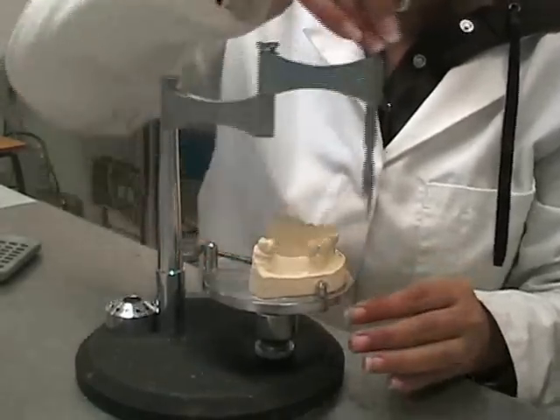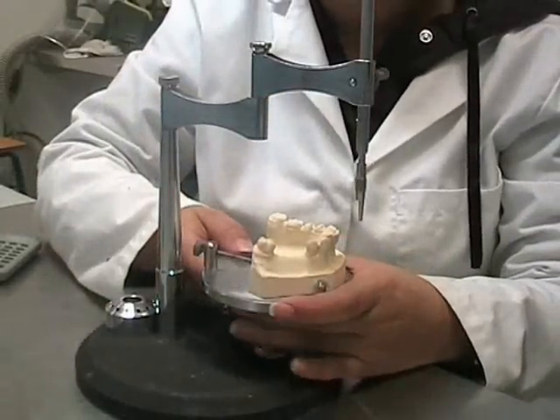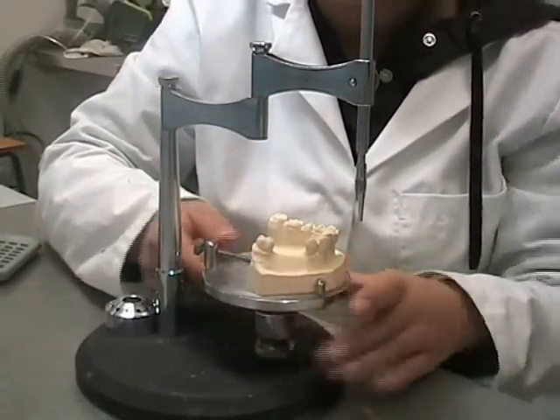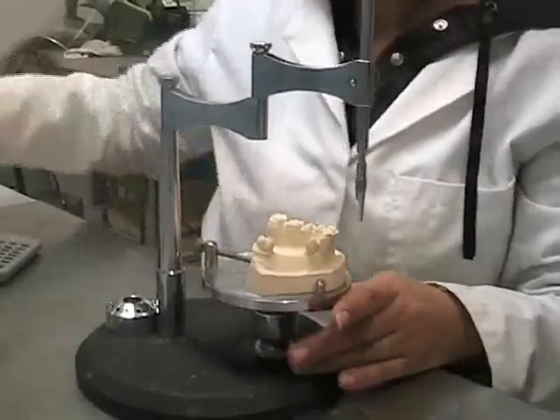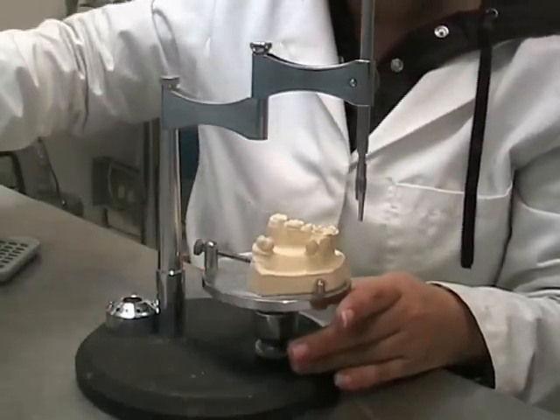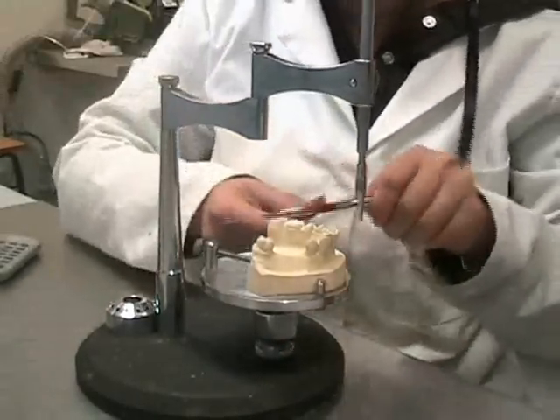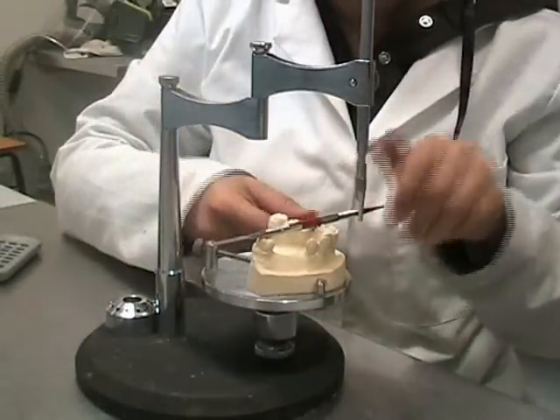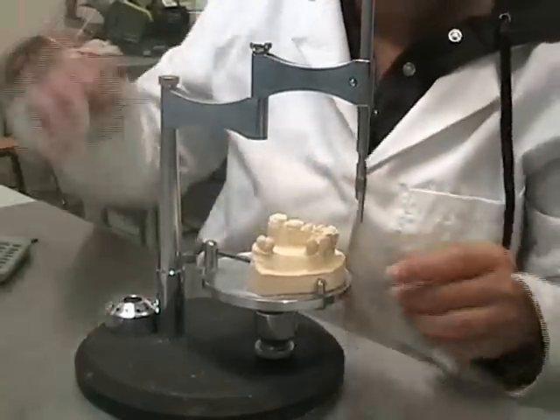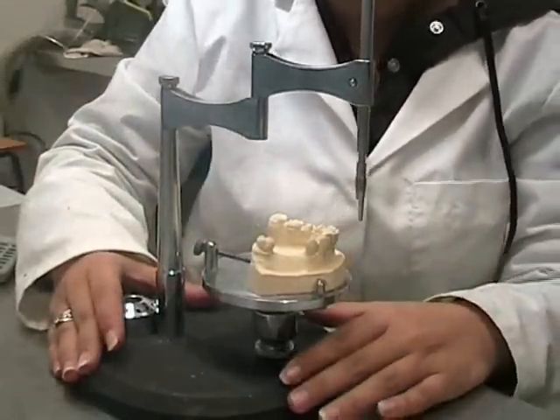Before starting our surveying process, we must position the cast table at a horizontal level. We can check this using an instrument. This process is known as aligning the cast.